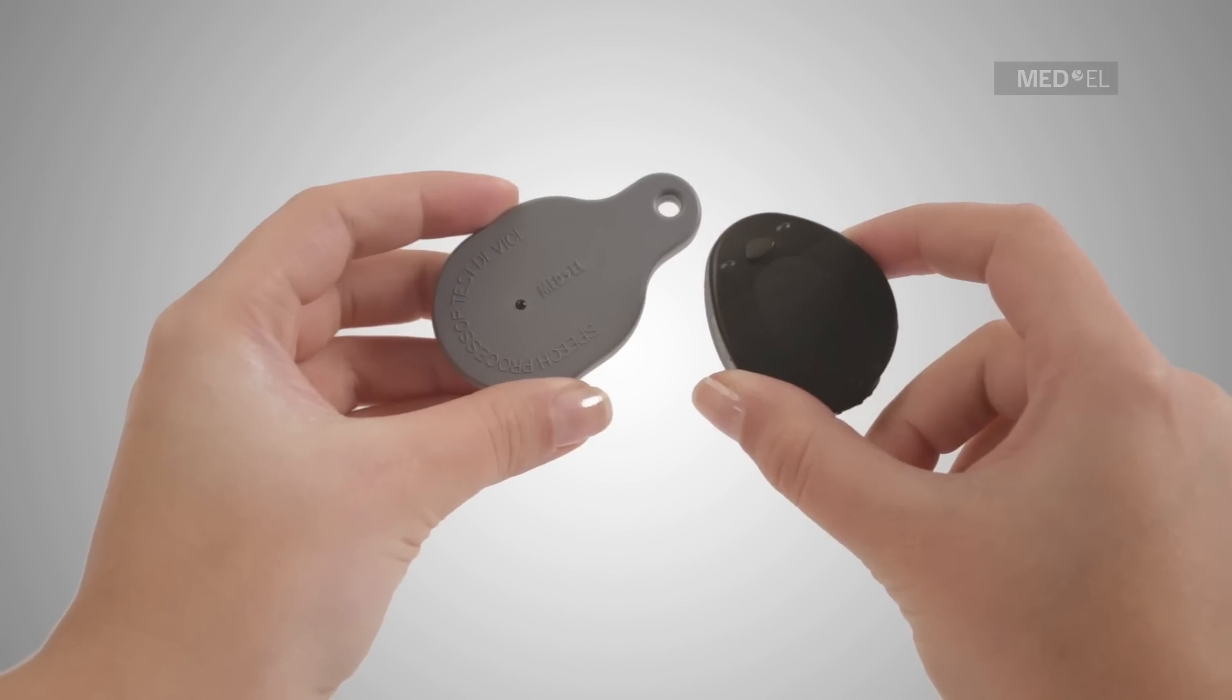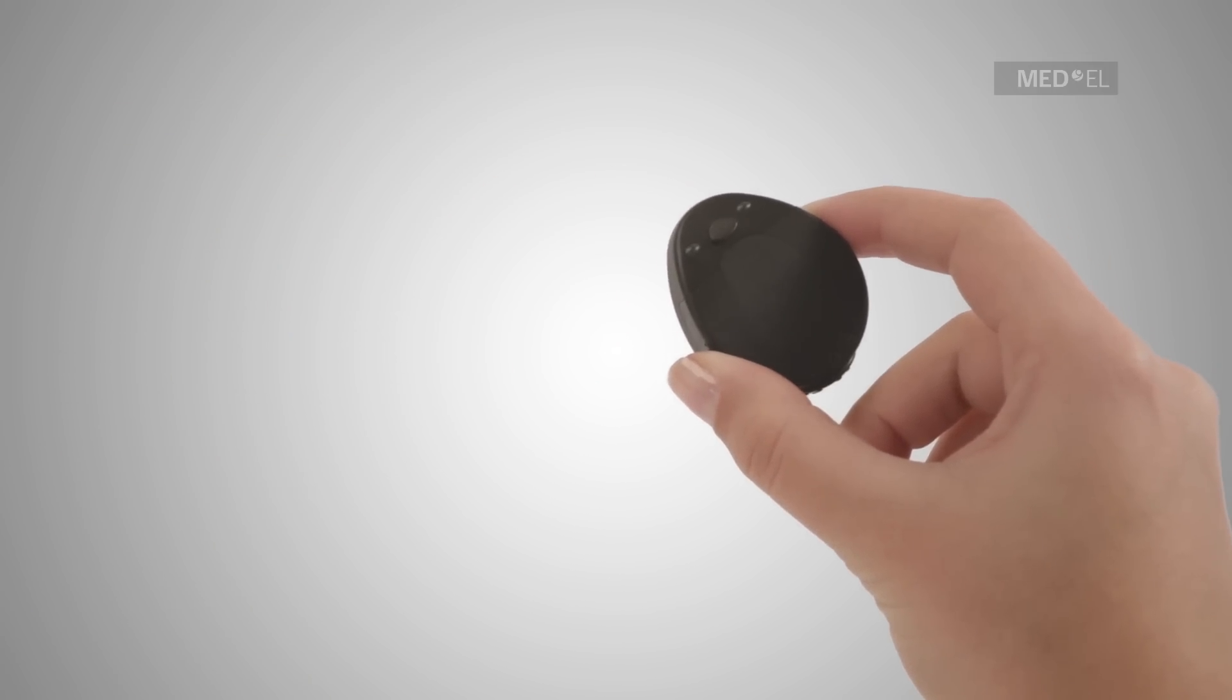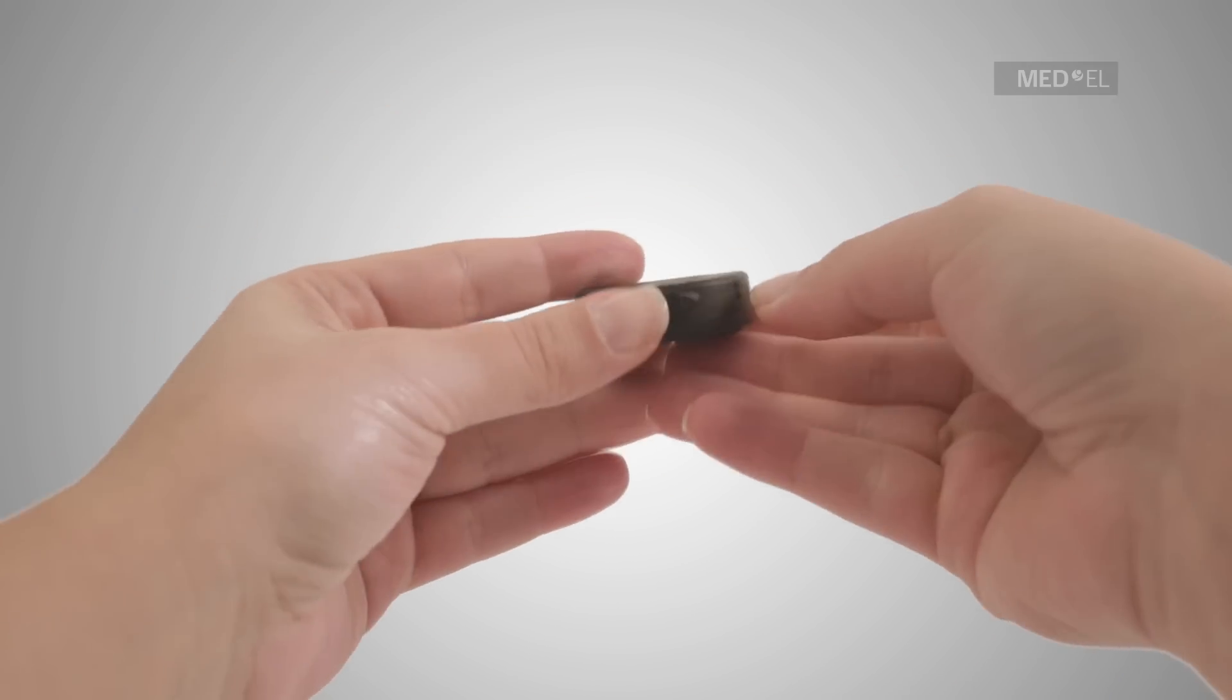To use the Speech Processor Test Device, first ensure that the batteries are adequately working. You may wish to test using fresh batteries.